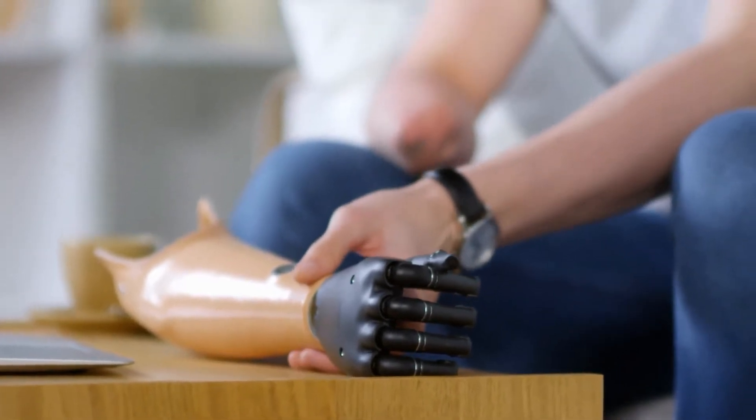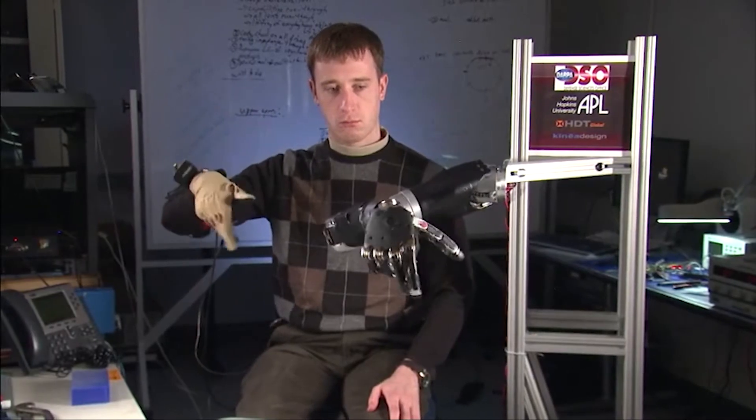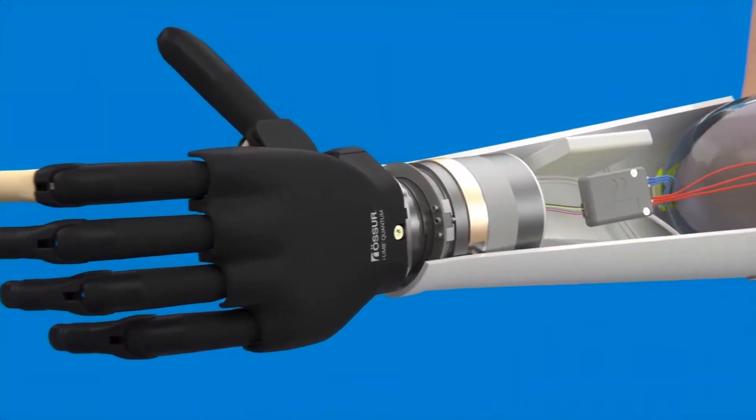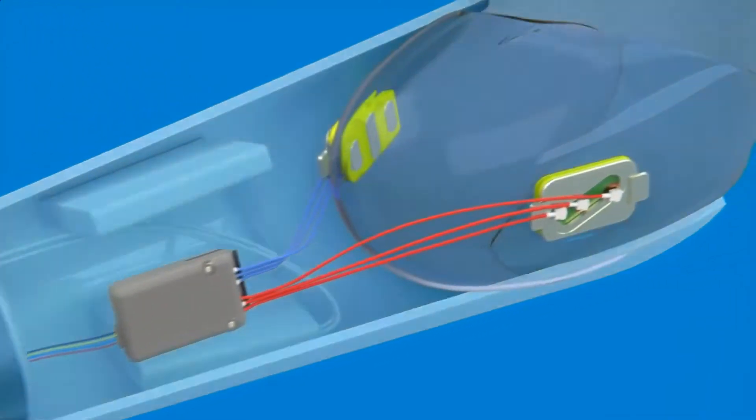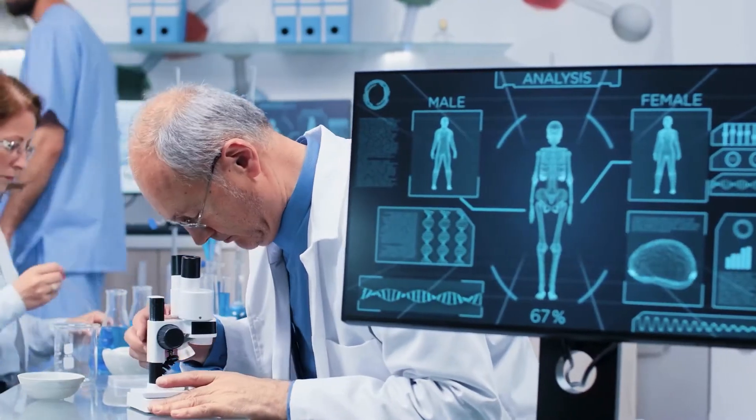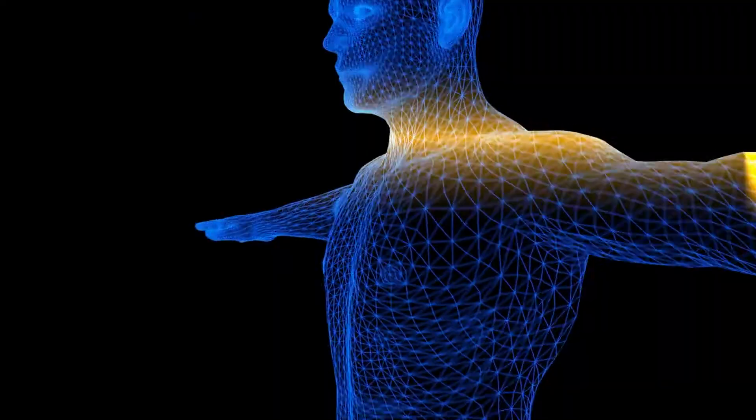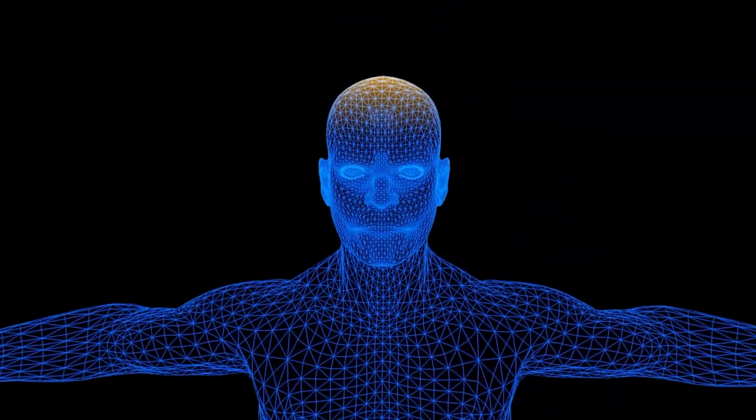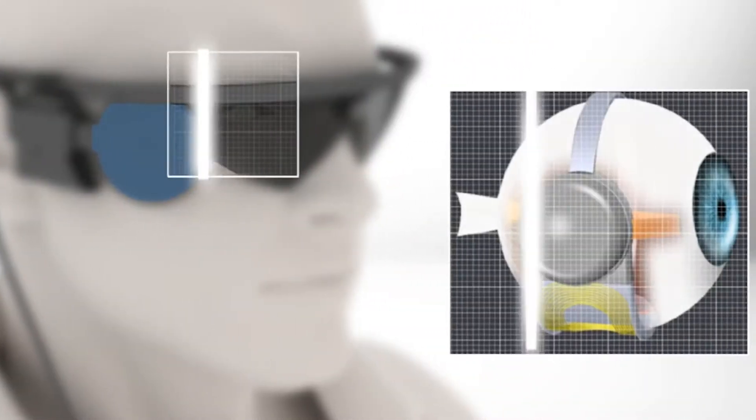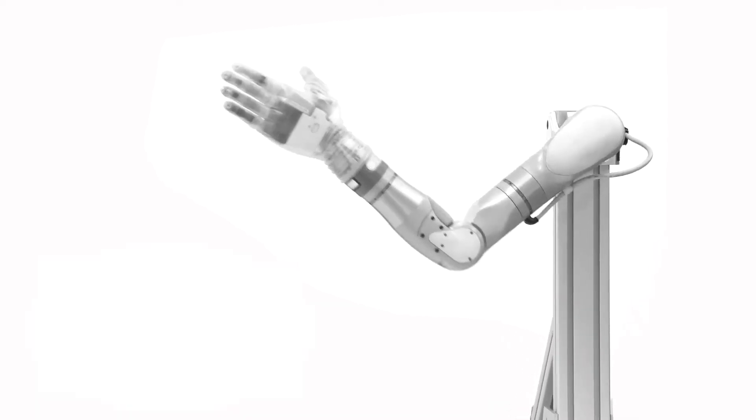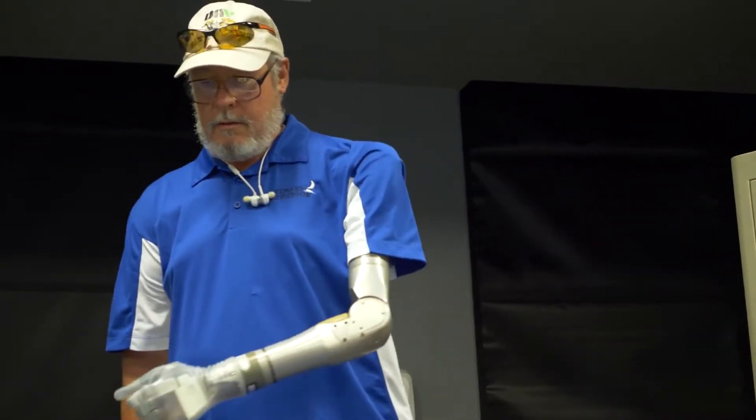Earlier, fake limbs couldn't do much, but as our tech evolved, so did prosthetics. It's a great time to be involved in prosthetic development, because there have been quantum leaps in research and understanding of how the human body works. Some of the prosthetics we'll look at today will amaze you because of their ability to make you part man, part machine.